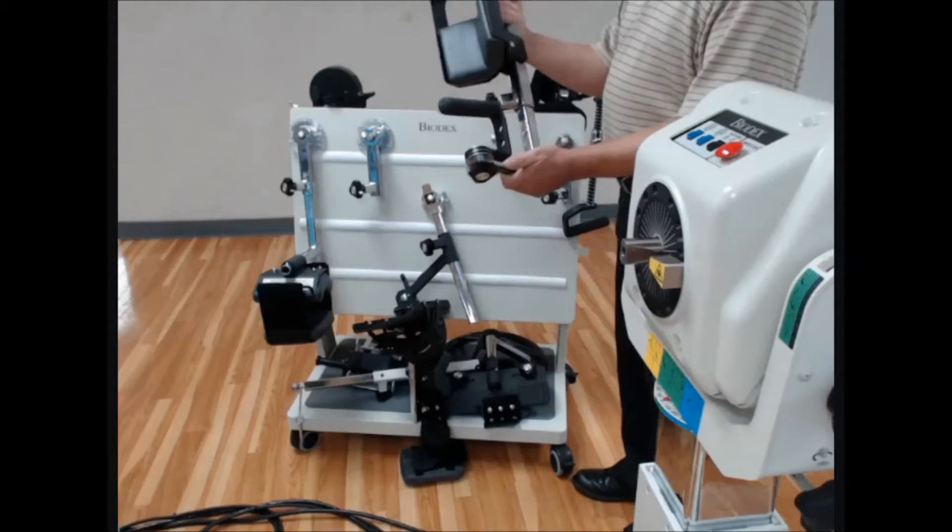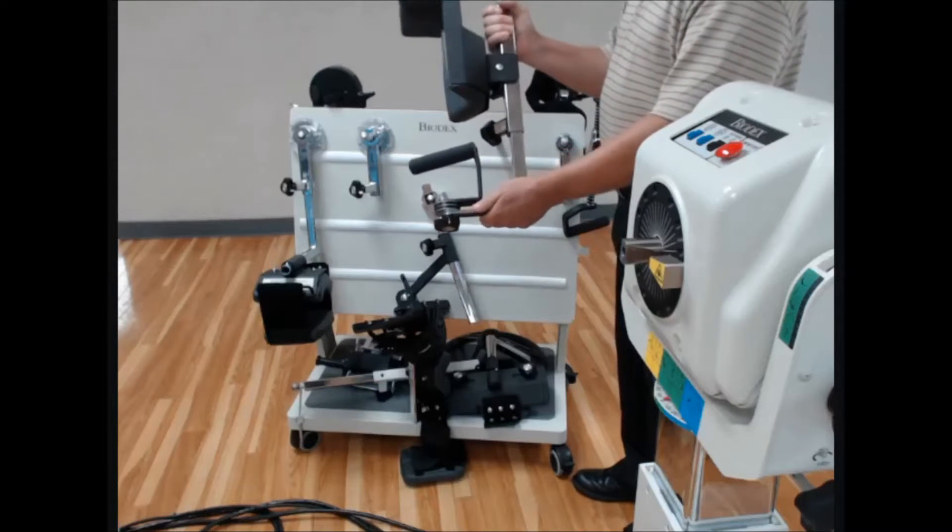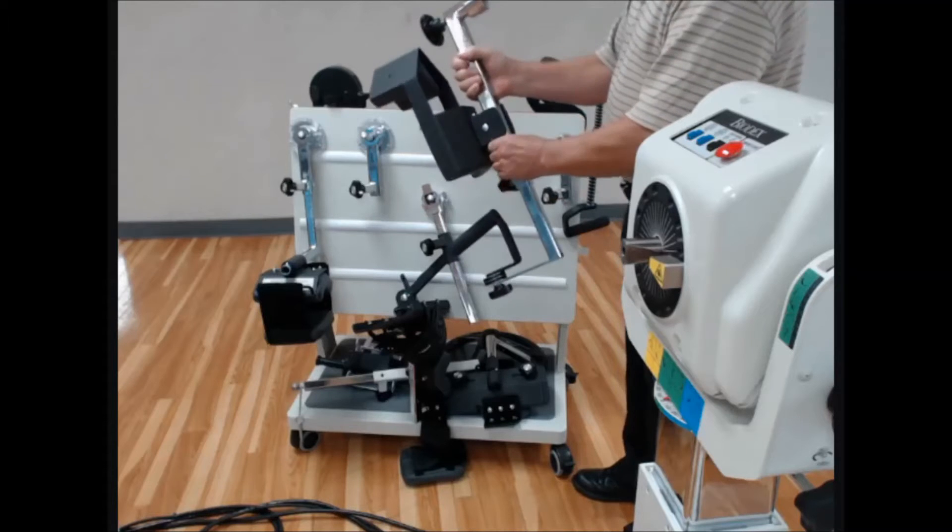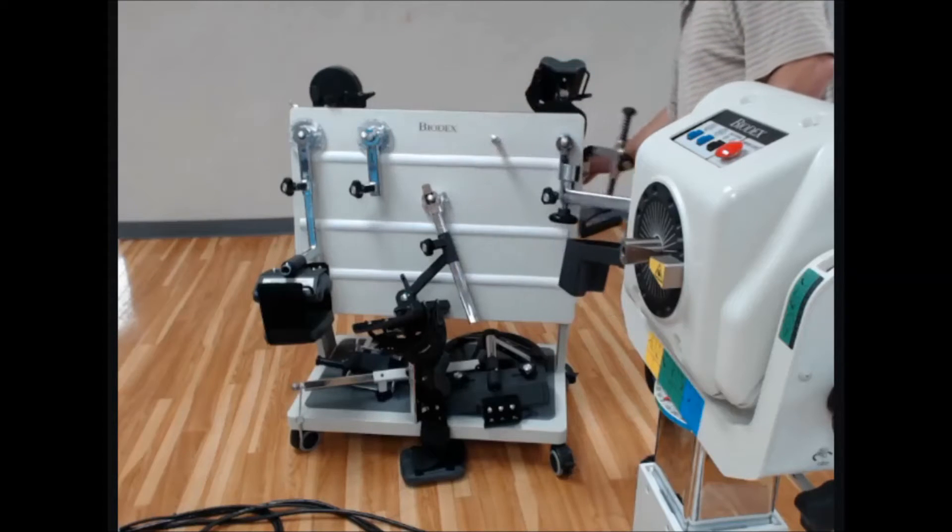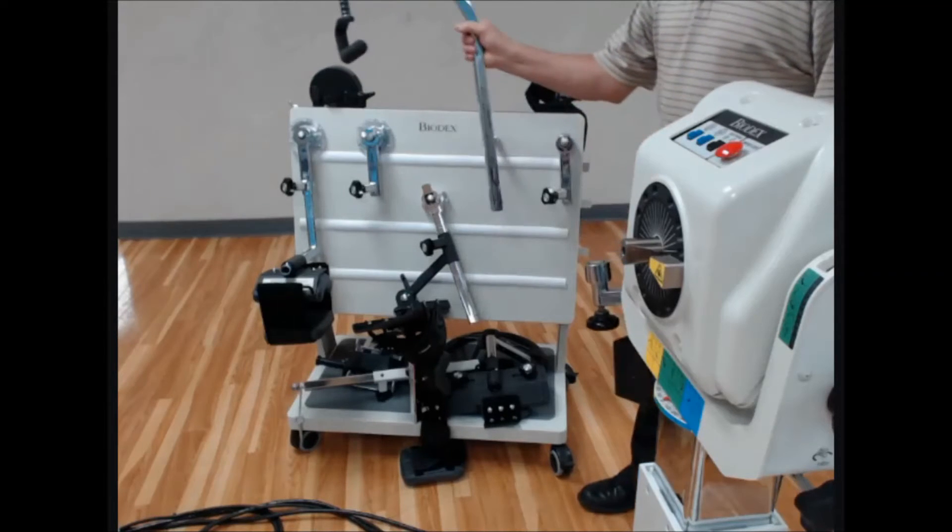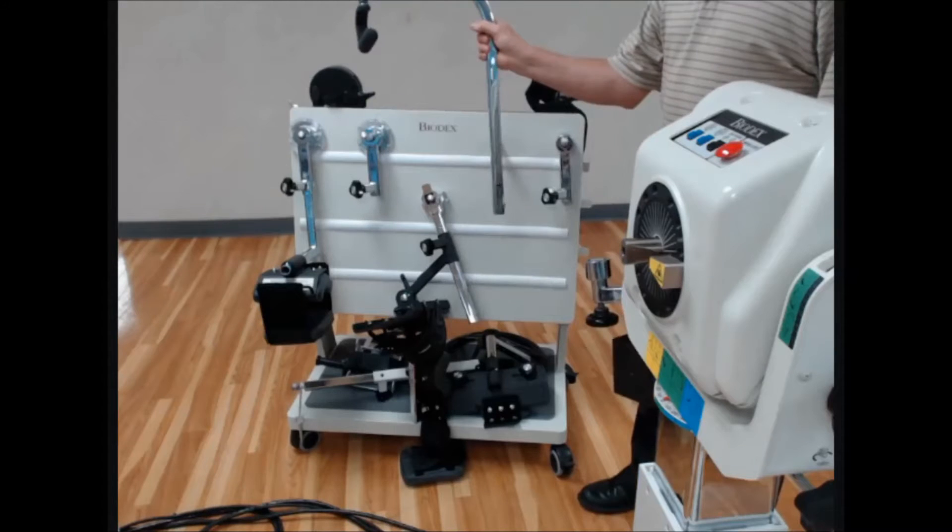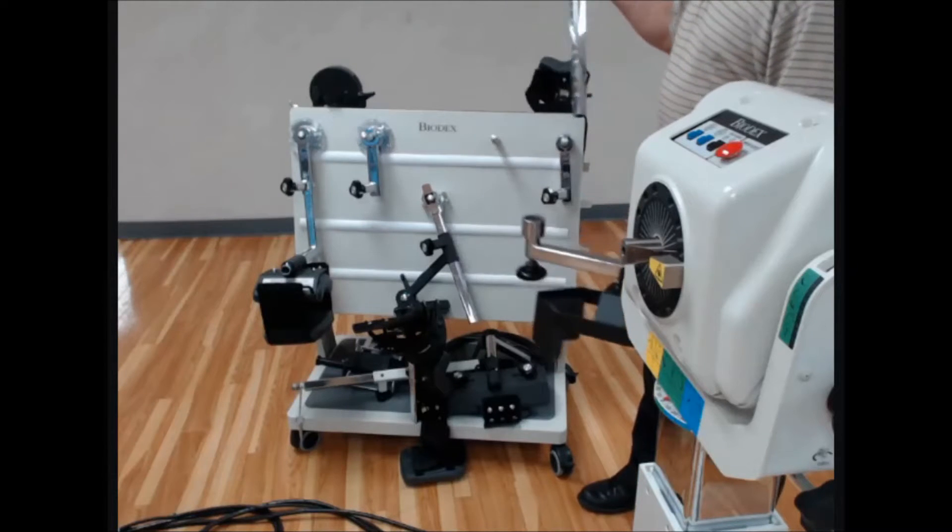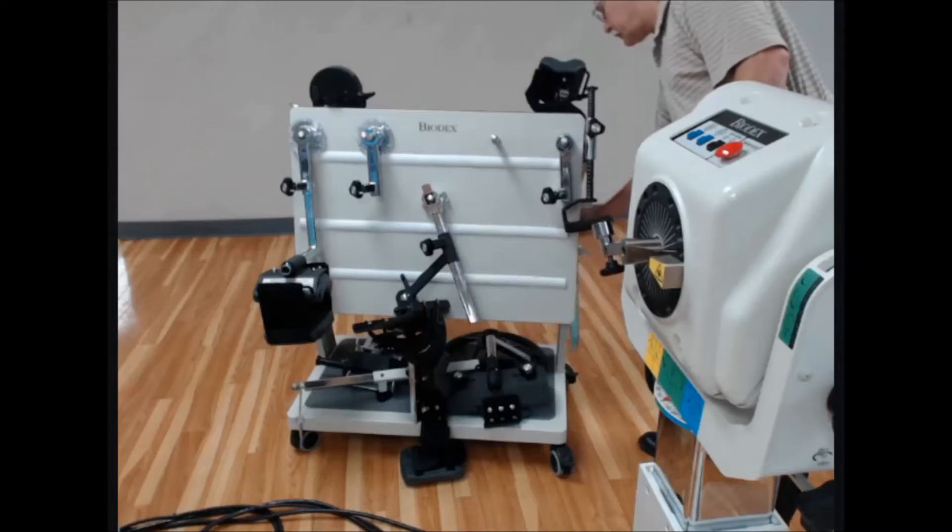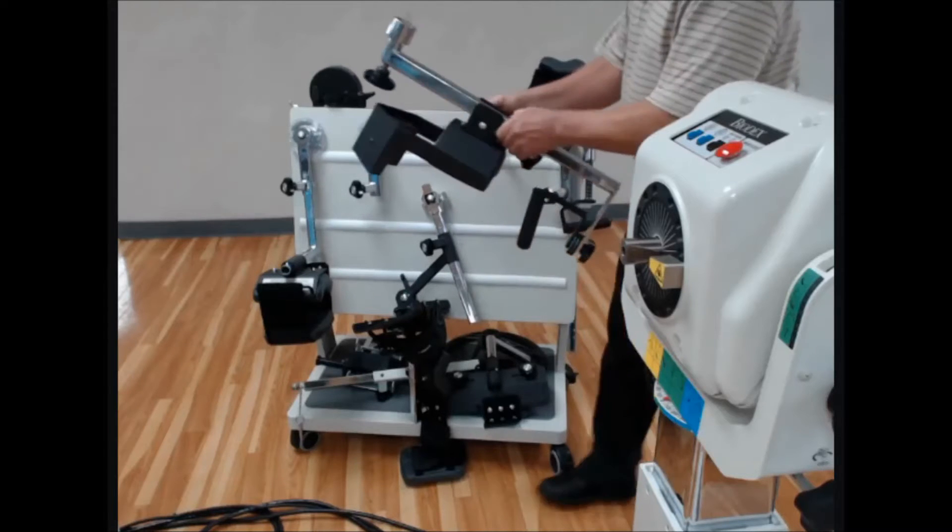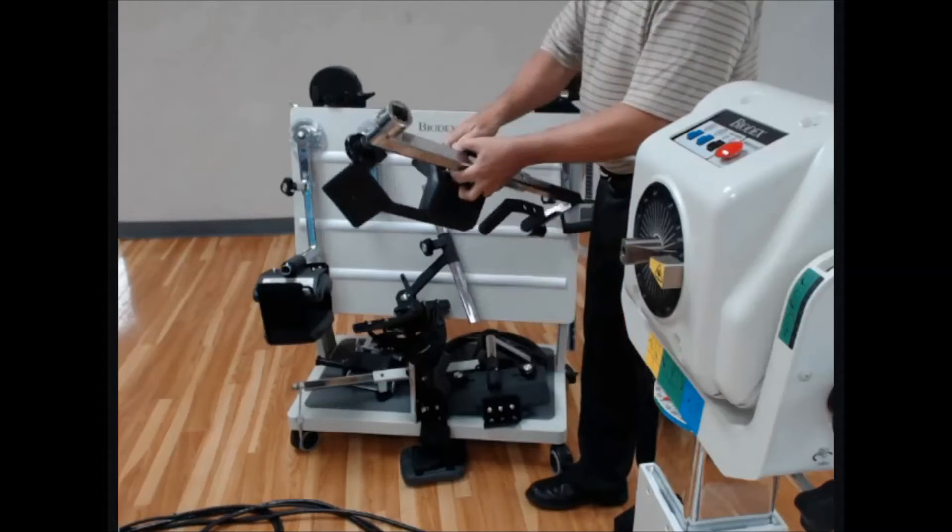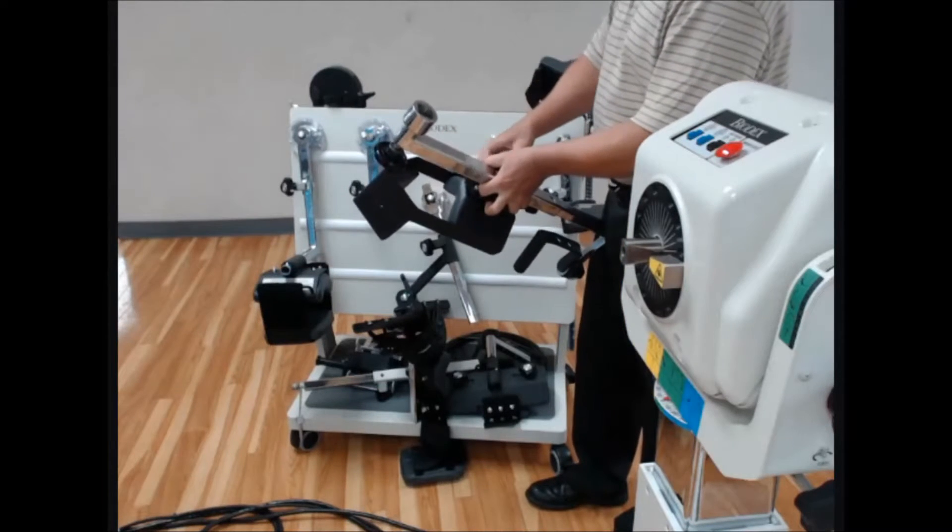This is the configuration it is in right now, or it may be configured as a shoulder extension flexion. So it may be attached to that as well. I'm going to disassemble this so we can get just to the shoulder input tube.